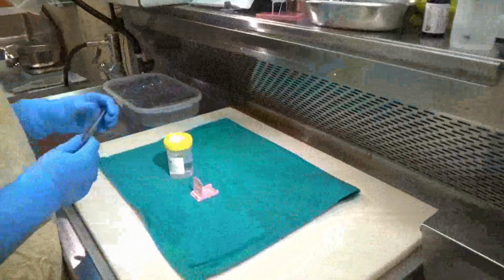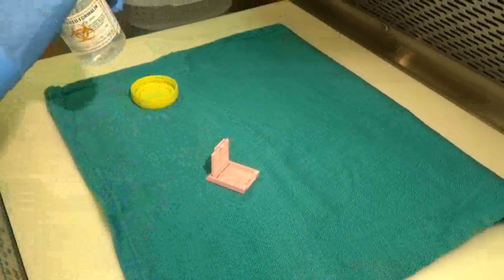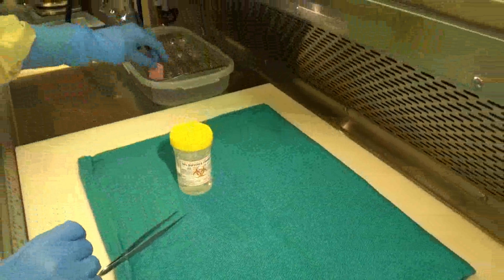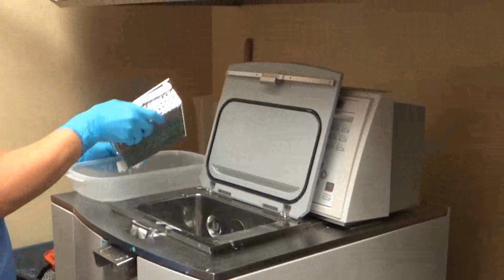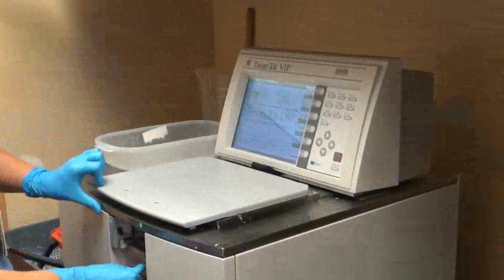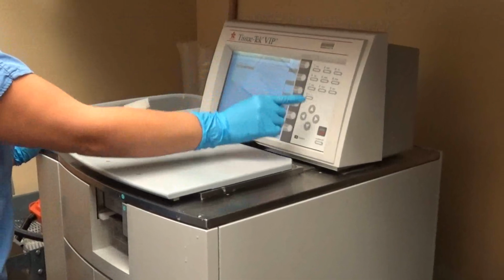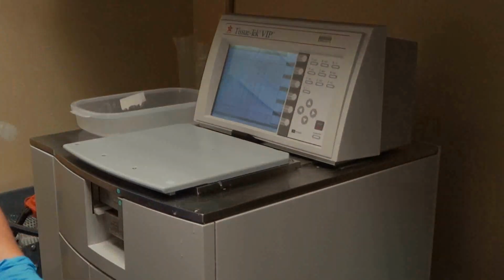Here is our pathology assistant putting the kidney biopsy into a cassette and then into a metal tray containing formalin. Here, our medical laboratory assistant is putting the metal tray containing the cassette into a processor. The histology processor changes the solutions from formalin into alcohol, then xylene, then into paraffin. Paraffin is the same as wax. This process takes about 12 hours.